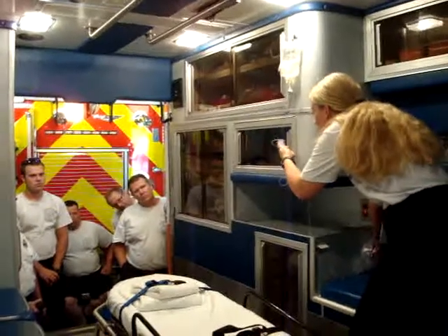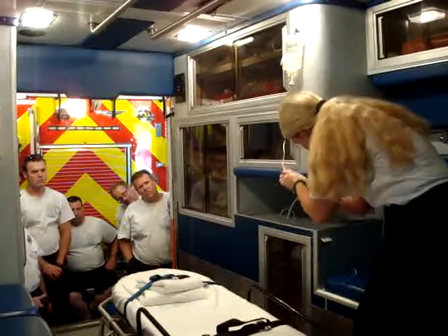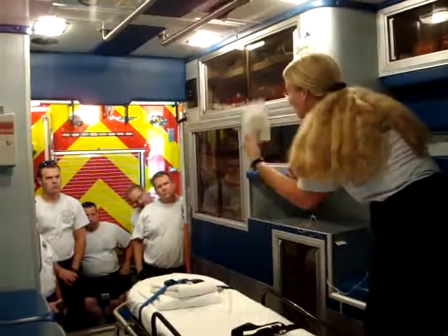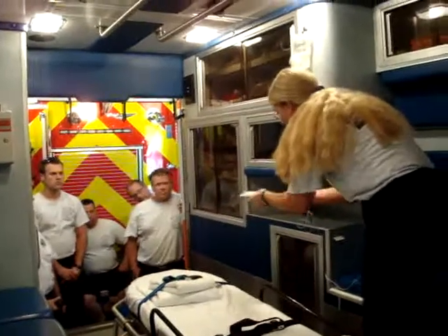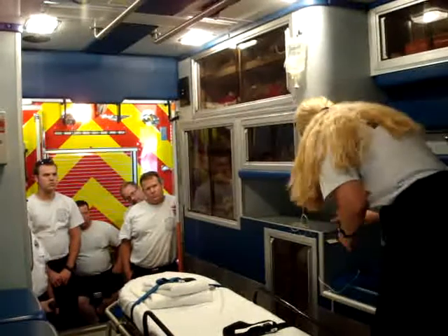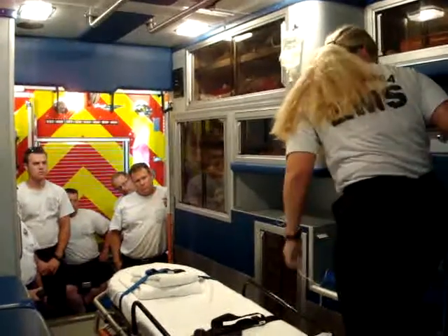When that's done, you roll the wheel down to the bottom so the saline is not hanging out of the bag. Then here we have our start packs. Open that up, rip it open, and you can set all this stuff out for your partners. Throw that packaging away.